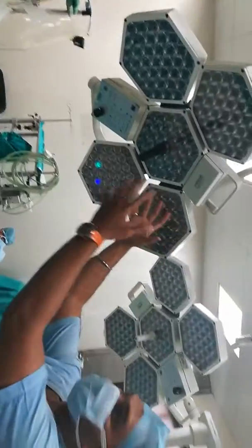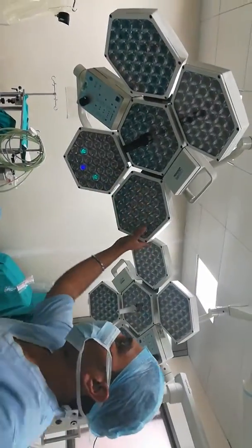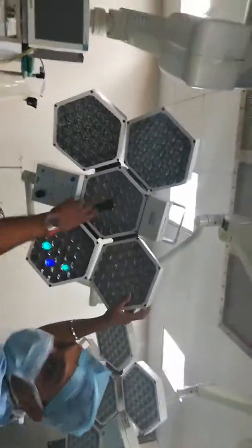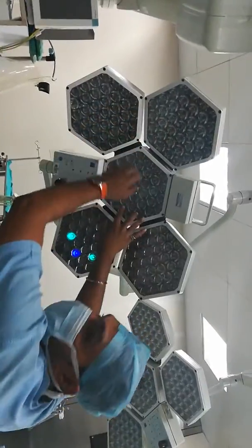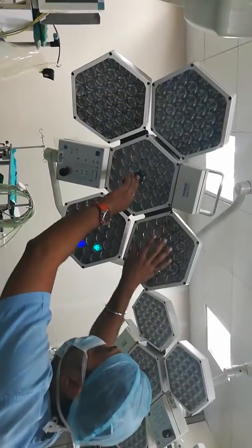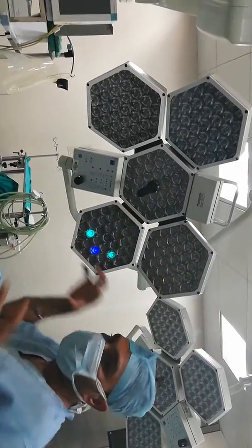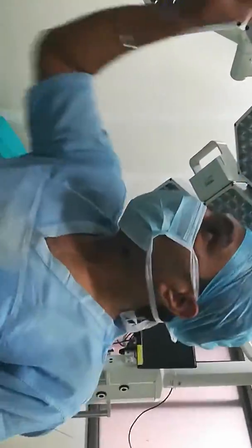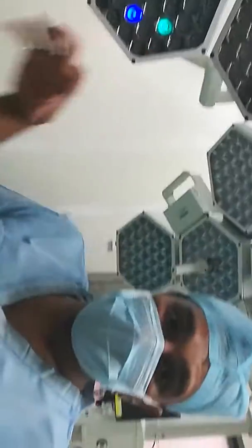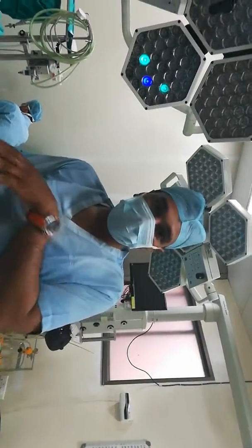This is what an OT light looks like. It has a petal structure and it has all LEDs. There are many LEDs that glow and make one light. There are so many LEDs because one concentric source will make a shadow.